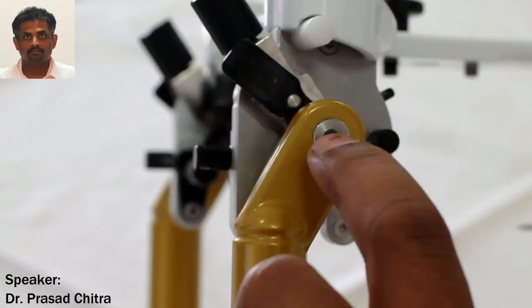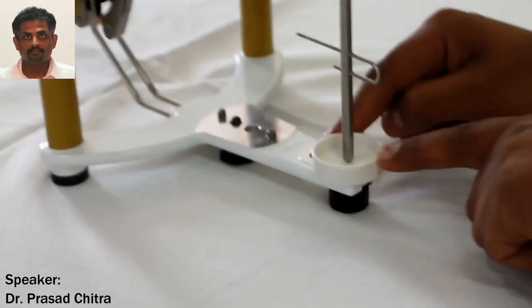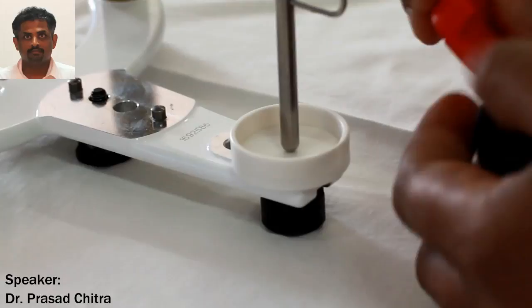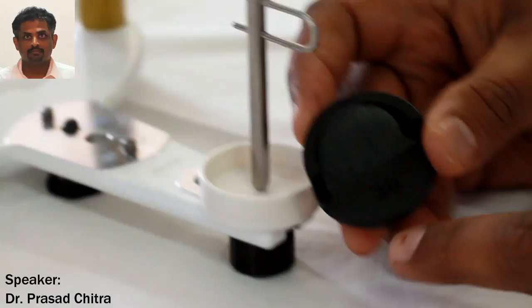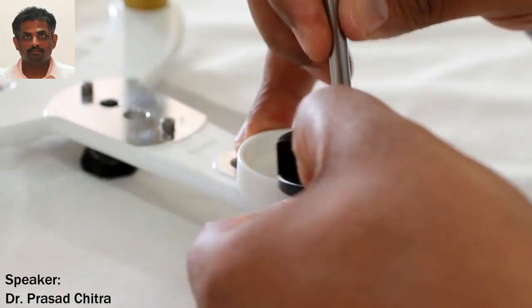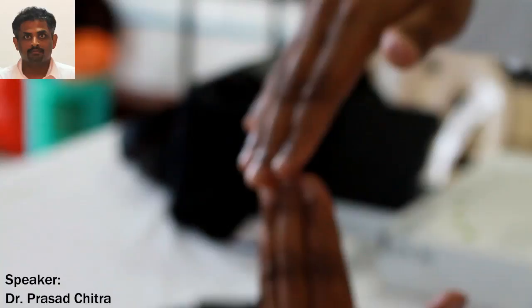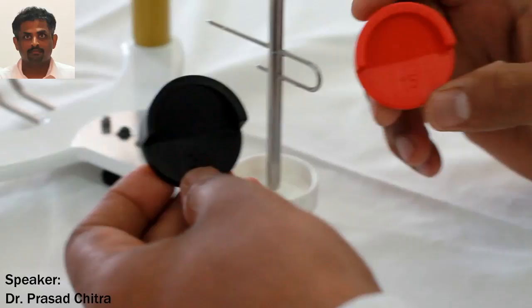When you come to the front, this is the incisal support, this is the incisal pin, and this is the incisal table. Incisal tables are of various types in semi-adjustable articulators. This is a flat incisal table. You also have incisal tables available in various angulations — a 15 degree angulated incisal table and a 30 degree incisal table. These incisal tables help move the incisal rod at a specified angulation, mimicking movement of the lower incisal on the cingulum plateau of the maxillary incisors, replicating the angulation as the mandible comes forward out of centric.